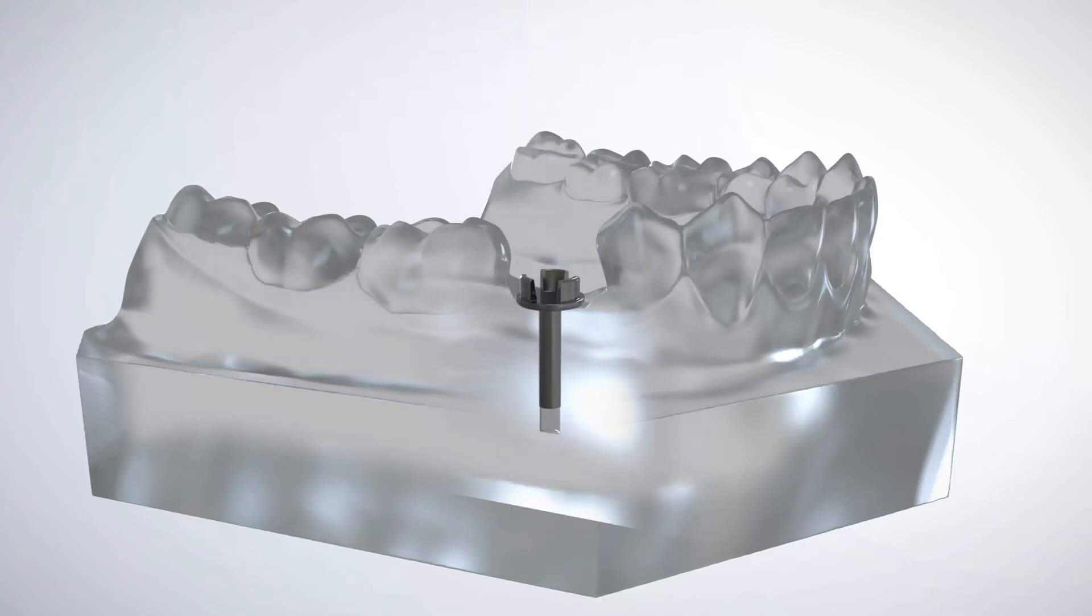The GRS surgical ring with the internal retention features positioned at the bottom is placed on top of the locator pin. The GRS protection cap completes the vacuum forming assembly.